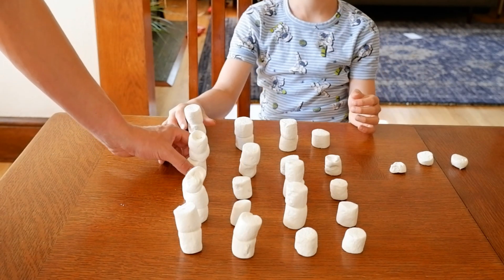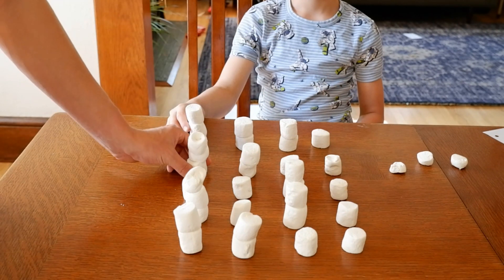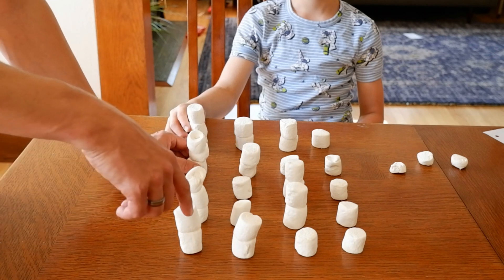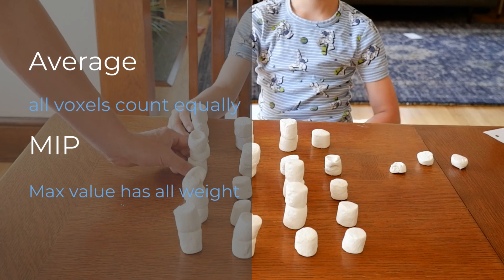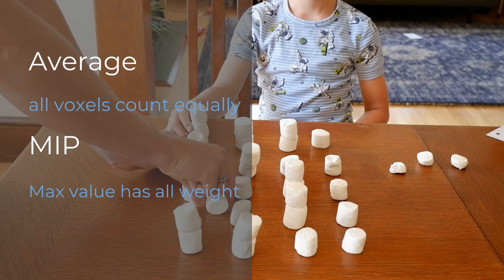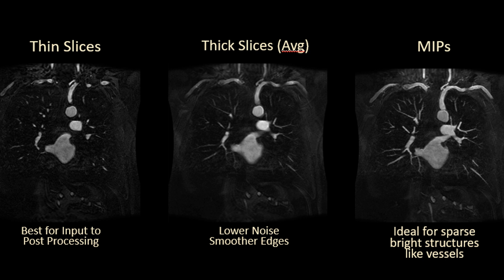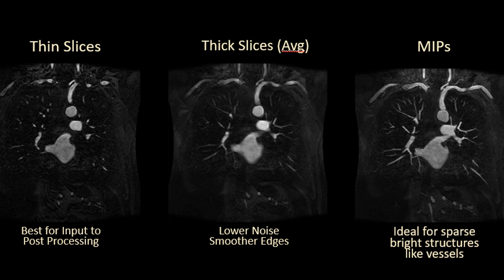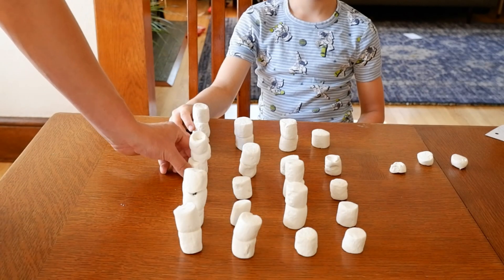The difference you'll notice is that when we did the average, they all counted equally — we gave them all the same weight. In the MIP operation, there's one set of marshmallows, whichever one's the tallest, that gets all of the weight. This MIP operation is good to highlight things that are bright and where there's not very many of them, such as vessels in contrast enhanced imaging. The average operation is good for things where you have noise in your image and you'd like to reduce that noise.